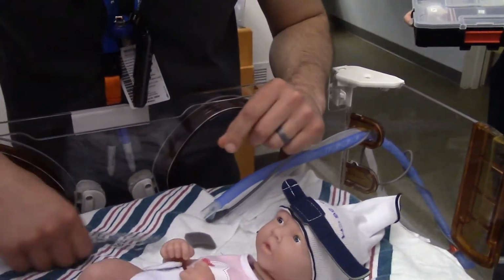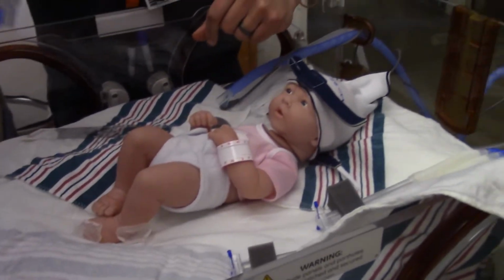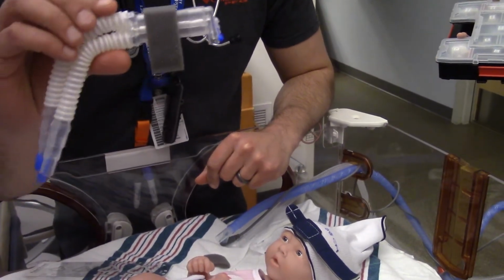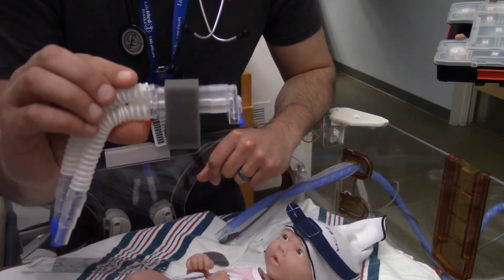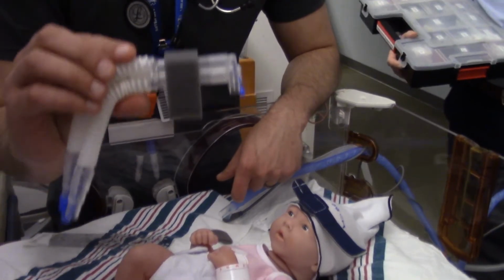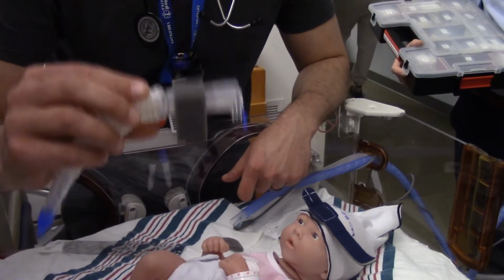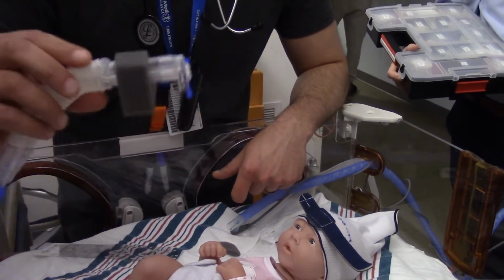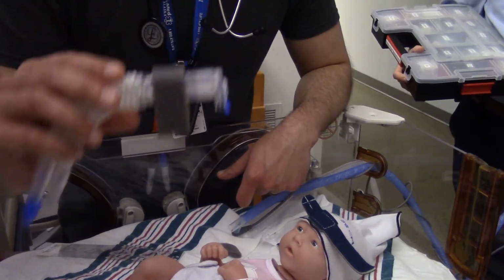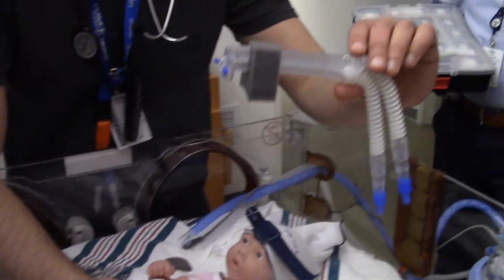So based off of that, each one of these is going to serve a purpose. The 50, typically we are not going to use that often at this facility because in the 10 years I've been doing it, and through Brian's career, I've only ever used a 50 on a micro preemie baby. So we have them if we do need them. So you will always have your resource, but typically the 50 is not going to be our go-to here. Mostly it's going to be the 70 and the 100.